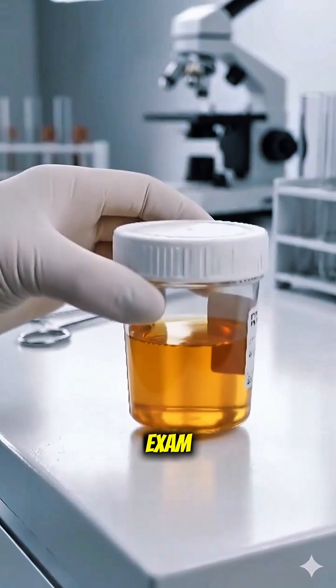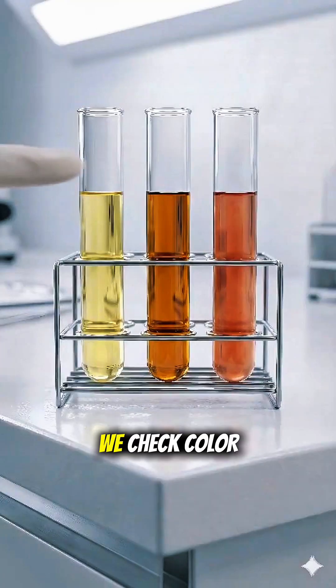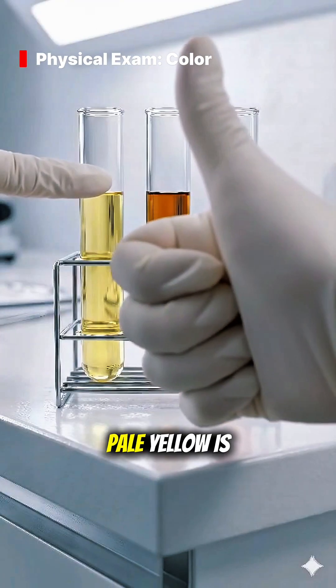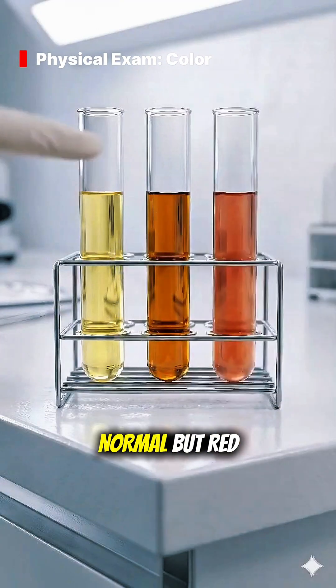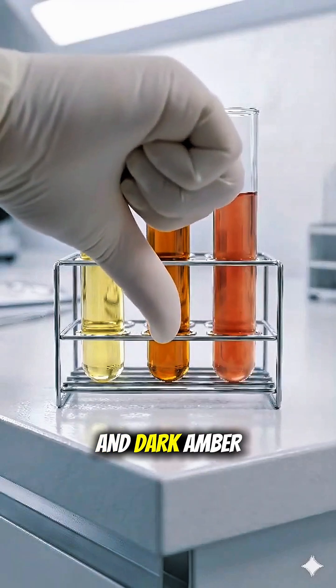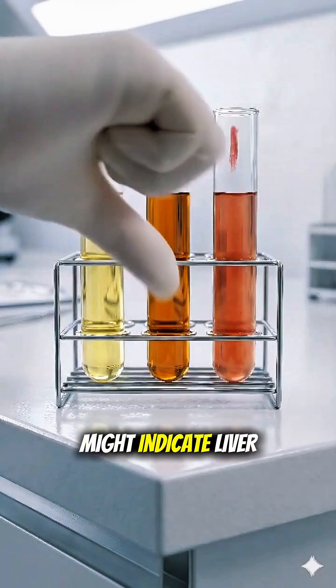First, the physical exam. We check color and clarity. Pale yellow is normal, but red could mean blood, and dark amber might indicate liver issues.